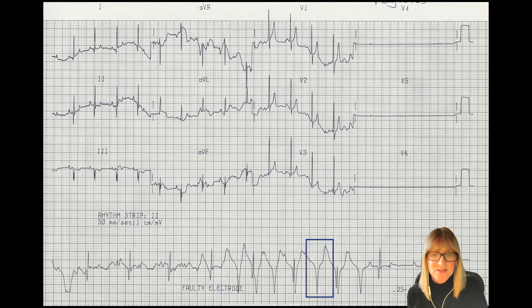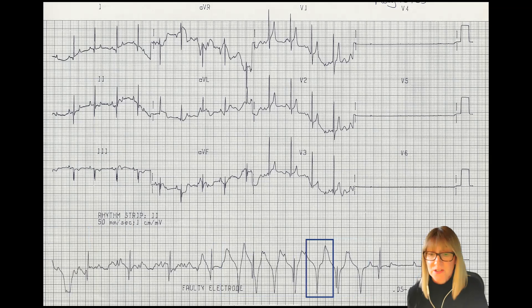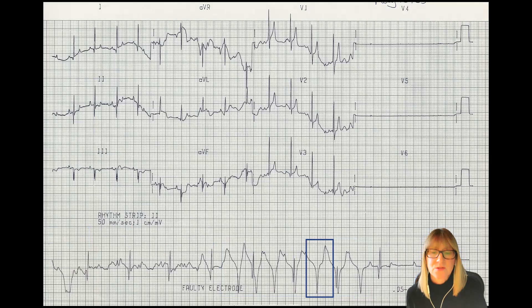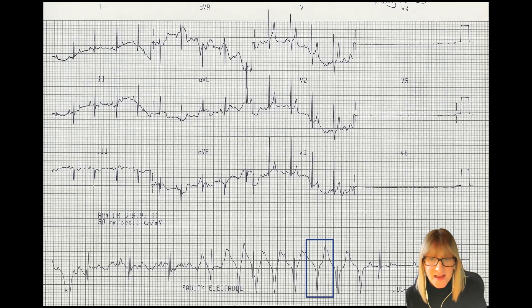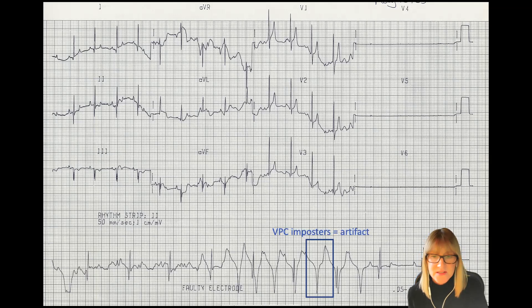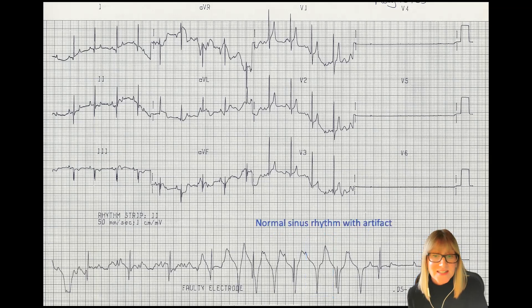Sometimes that garbage gets really clever. I've put a box around an area where, on first glance, it looks like a classic ventricular premature complex or VPC. If we're not paying attention, these wide and bizarre deflections can lead us to jump to the conclusion of premature beats or VTAC. But I think we have a case here where it's an imposter for a VPC — in fact, in this section we can identify our normal complexes amongst the garbage.